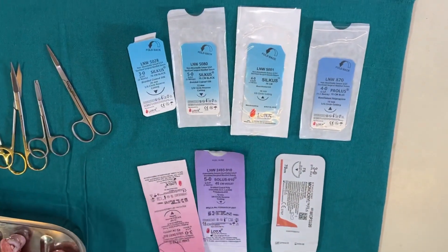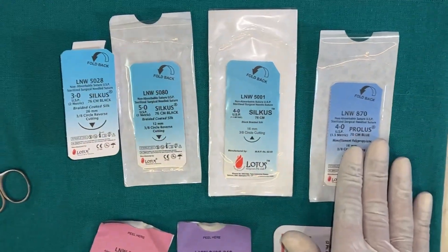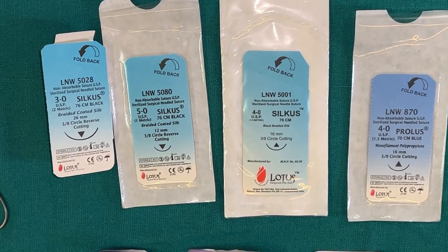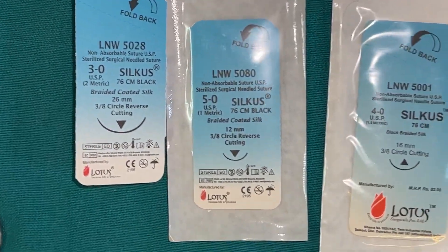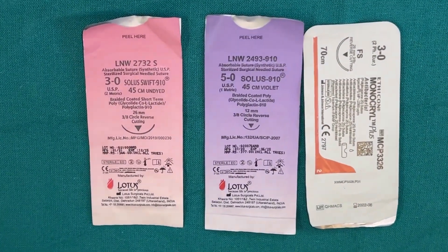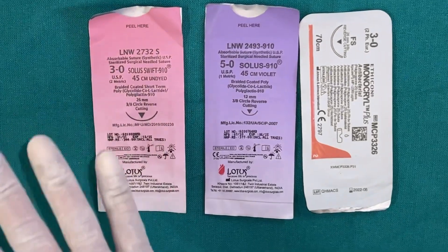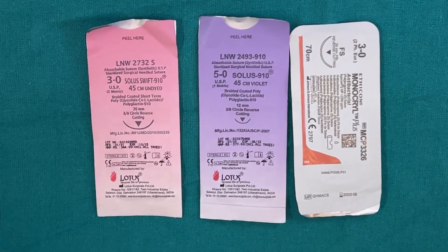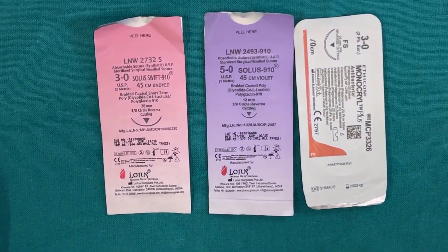To recap non-resorbable sutures, we covered natural (silk) and synthetic (Prolene), along with the common needle specifications: 26mm, 3/8 circle, reverse-cutting, swaged. Moving on to resorbable sutures, these are also divided into natural and synthetic. The natural resorbable material commonly used earlier was chromic gut, derived from sheep intestine — not cat intestine despite the name.